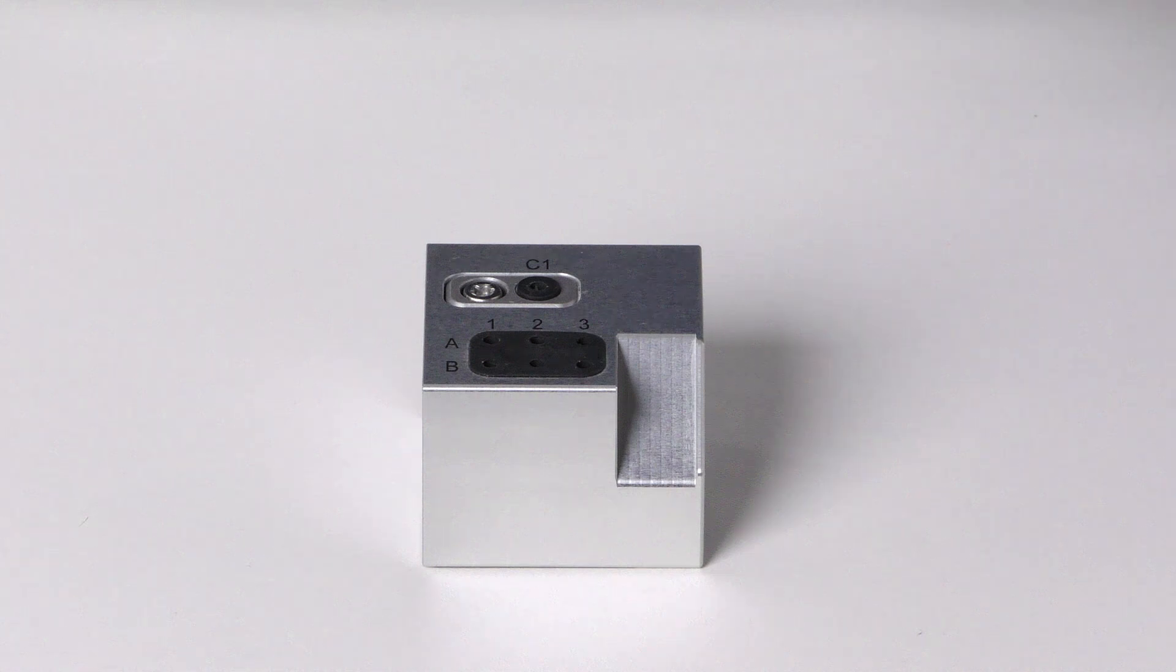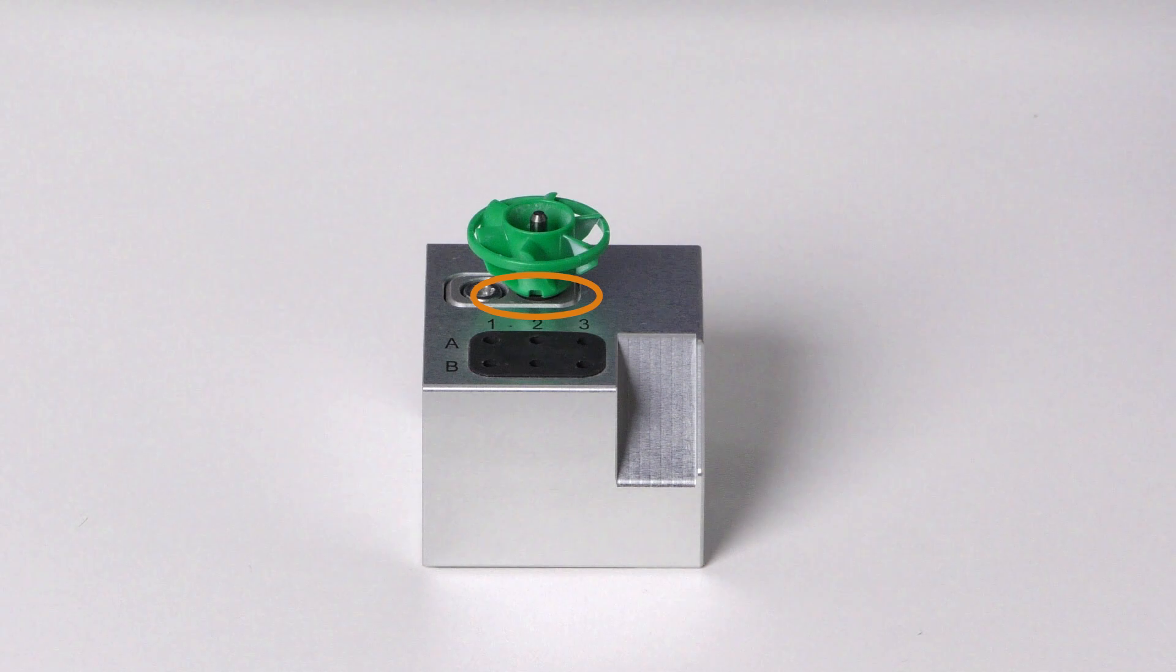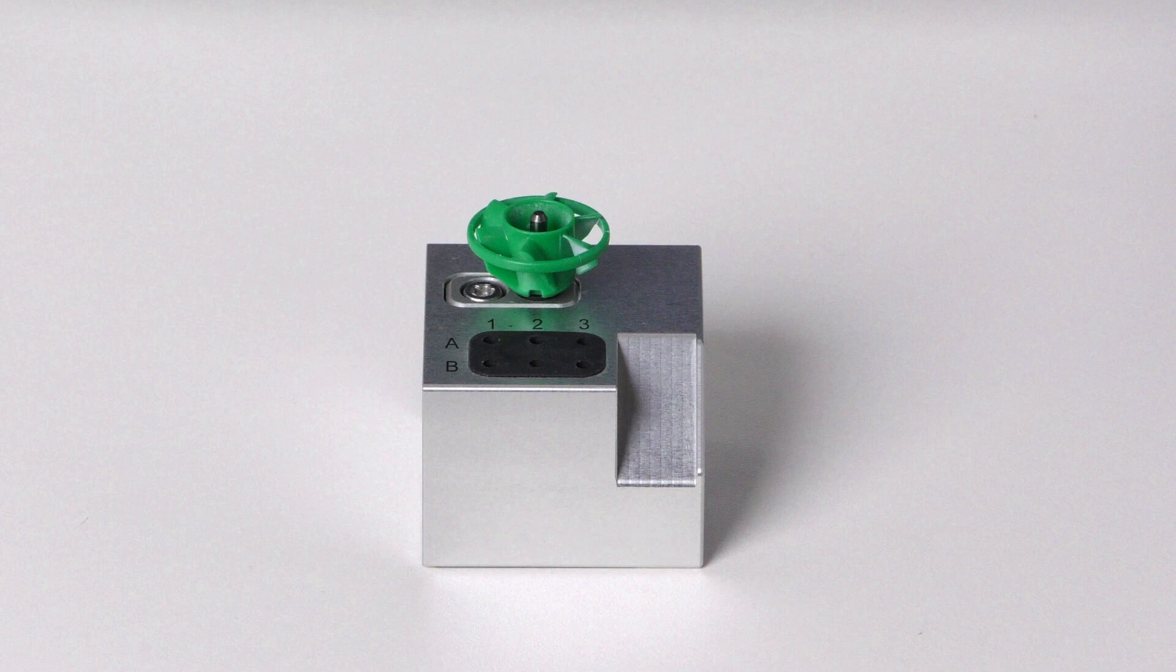Insert the required air tool into position C1. Slide it in until the propeller engages the tool magazine insert. Notice incorrect processing results if the air tool is not used.